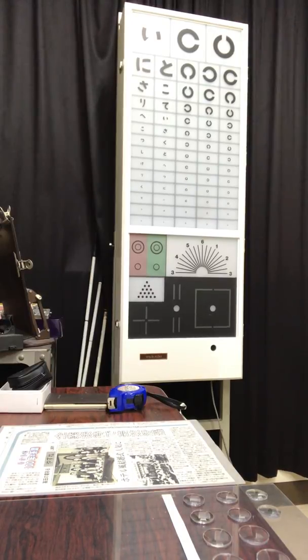Today, I would like to make two different types of eyeglasses for low vision people with the same diopter but different working distances.